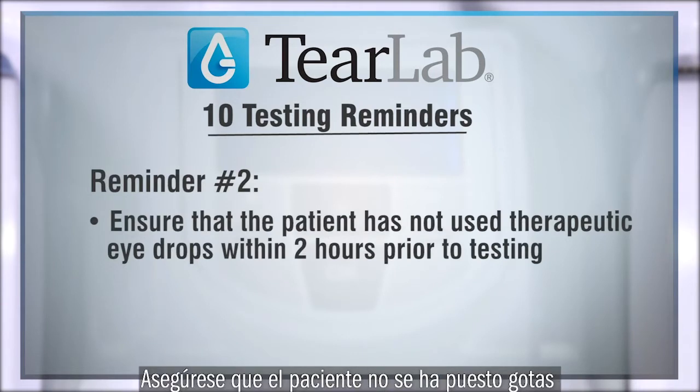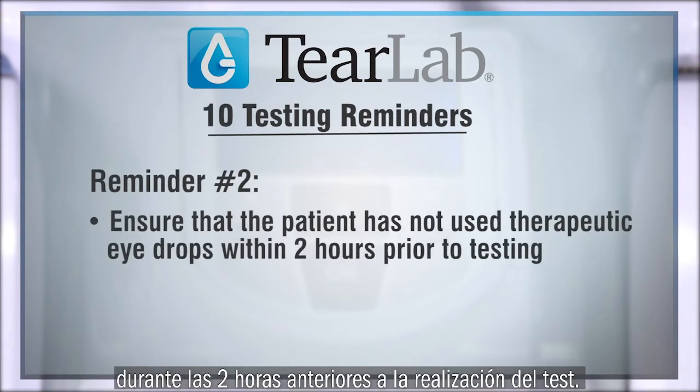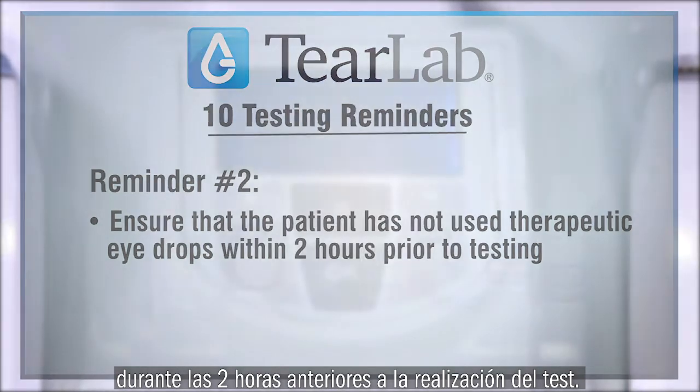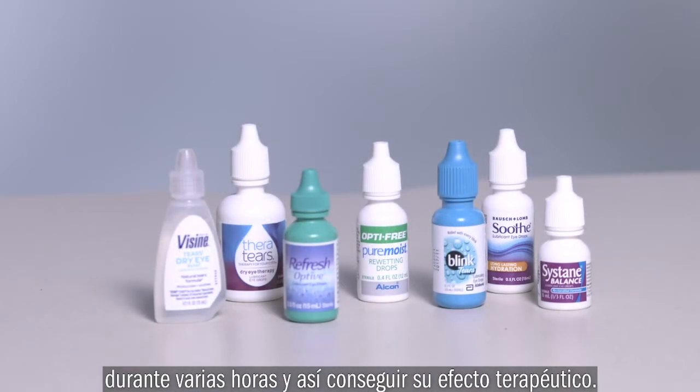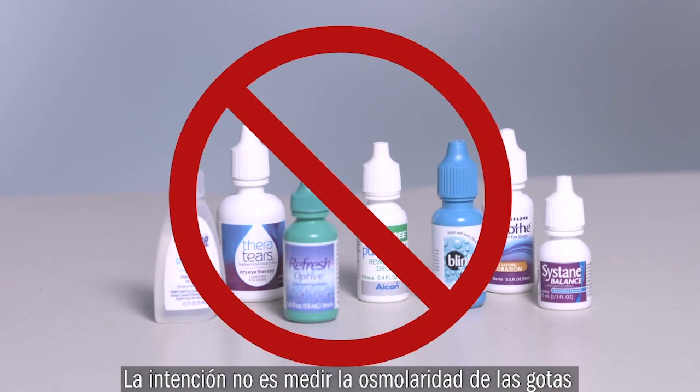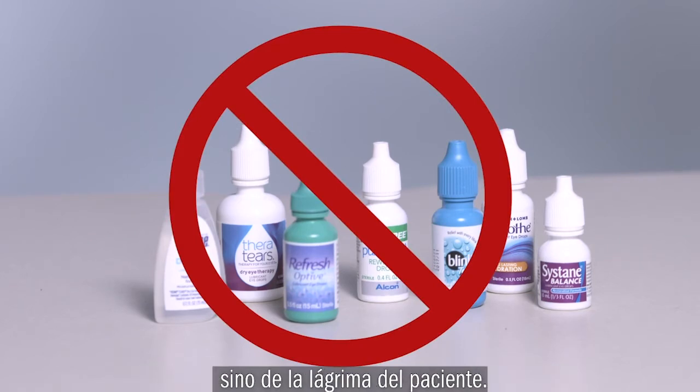Reminder number 2. Ensure that the patient has not used therapeutic eye drops within 2 hours prior to testing. Therapeutic eye drops are designed to stay in the eye for extended periods of time to provide a therapeutic effect. You do not want to test the osmolarity of artificial tears, but the natural tear fluid.